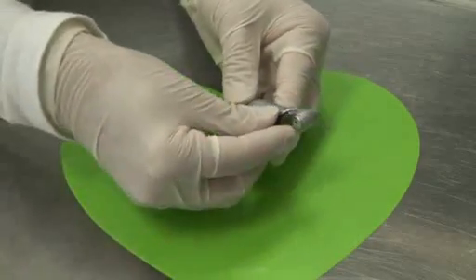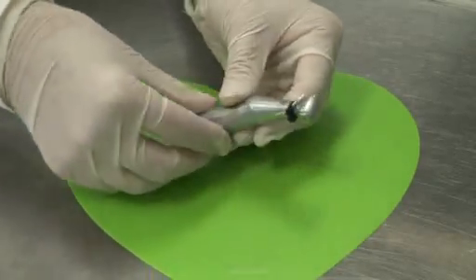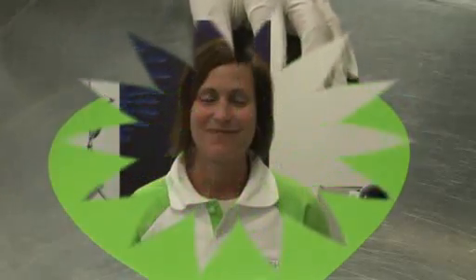And then lastly, your spray clip. Please note what I have just shown you is step two of our recommended six step optimum hygiene and maintenance procedure. Please refer to your user manual or contact us directly. Thank you.